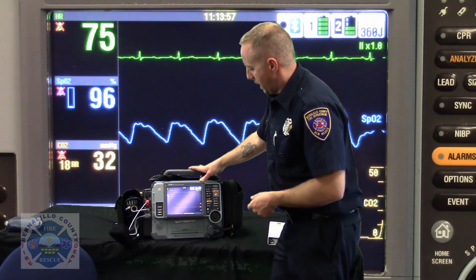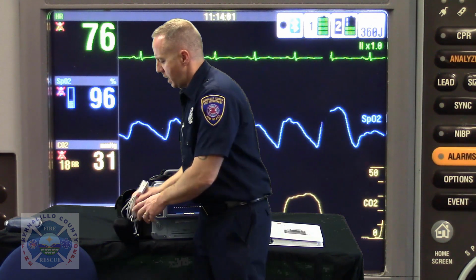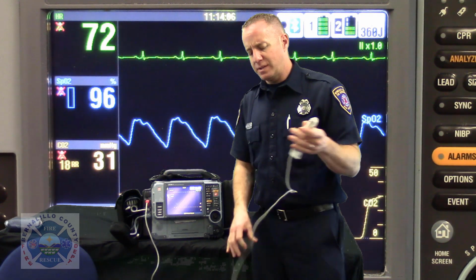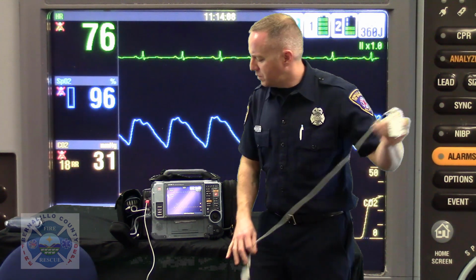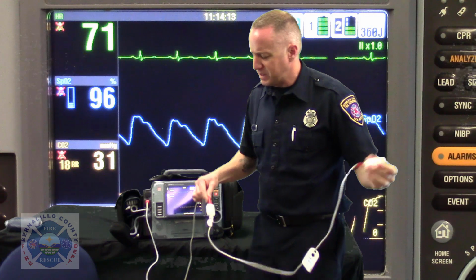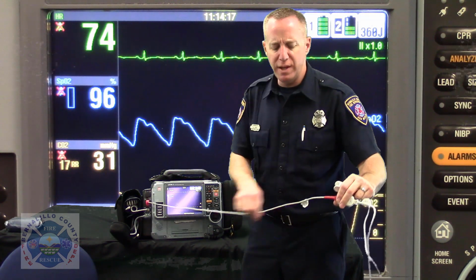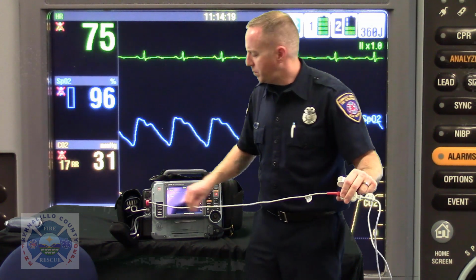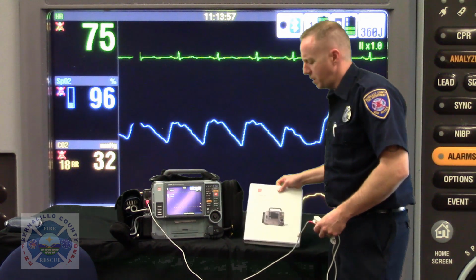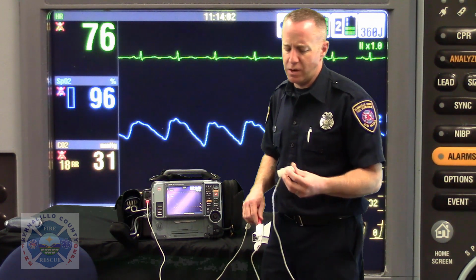Now that we've made patient contact and we want to use our first vital sign, pulse and pulse oximetry, we're going to be using the rainbow cable. Now the rainbow cable is a fancy and expensive cable, and it needs to be treated as a fancy and expensive cable. So when you're deploying this and rolling it up in between patients, it should be cleaned per the guidelines, which you'll find in the operating manual. You never want to submerge this in any kind of cleaner. It tells you specifically how to wash it.